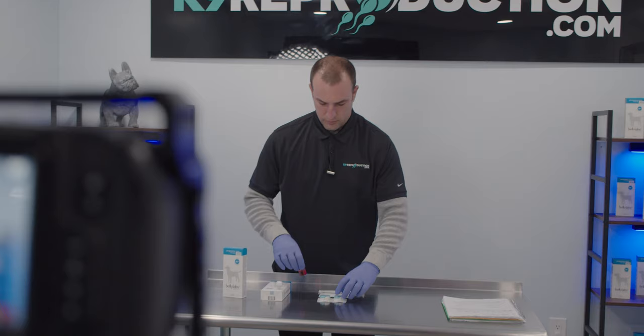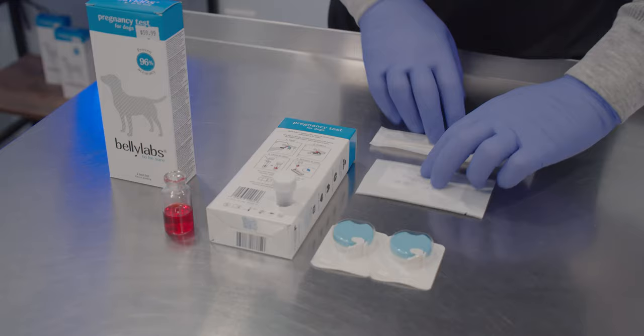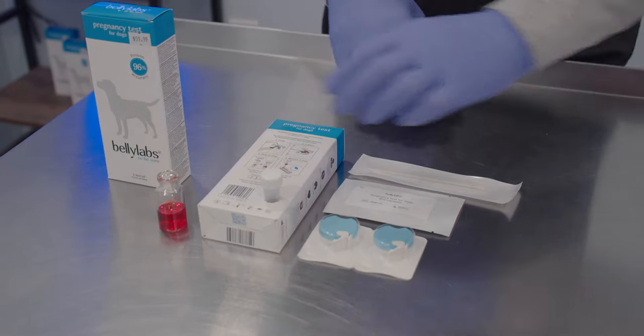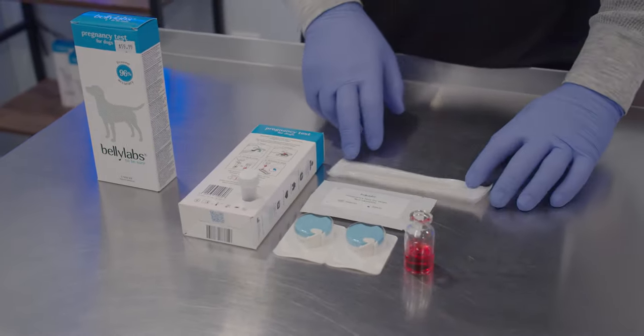Simply use whole blood. Whole blood is a huge advantage in relaxin testing. No longer having to centrifuge down your blood means no longer having to risk hemolyzed blood samples giving you false readings.